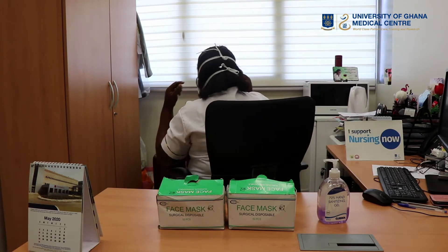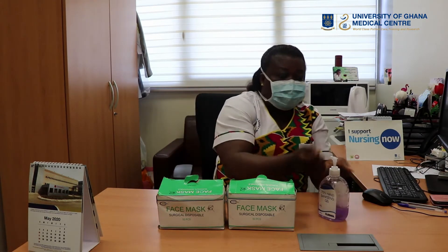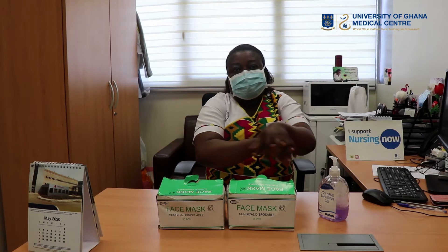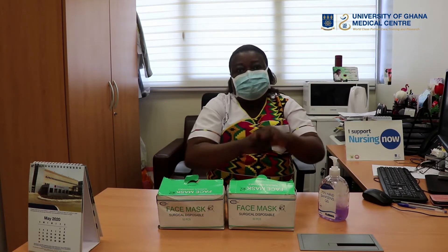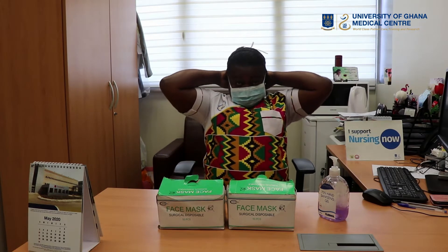That's how we put on the face mask. As you can see at my back, I have no cross. When you want to take off the face mask, you have to sanitize your hands again by using the sanitizer, through the same steps: palm to palm, palm to dorsum. Then interlace, cap, the thumb, and then the wrist. Now you are going to undo the lower strings first.